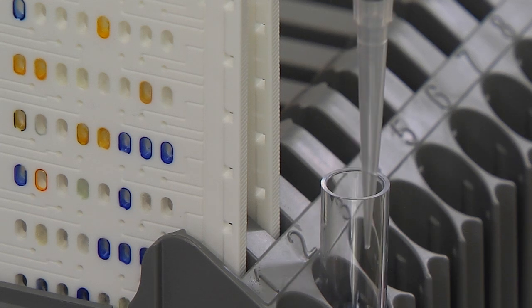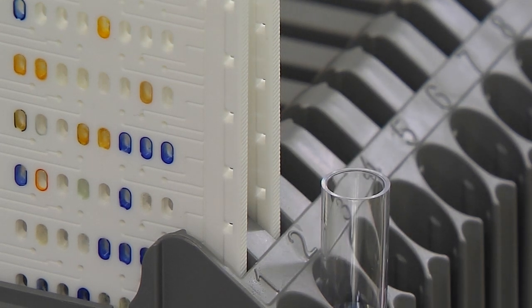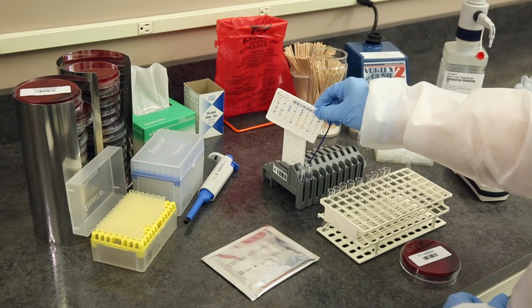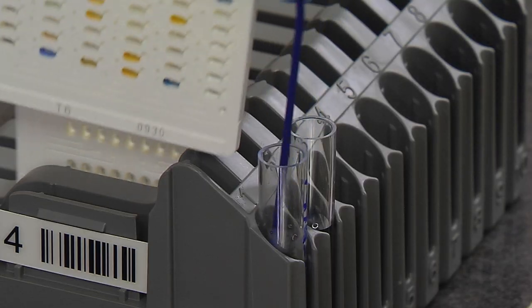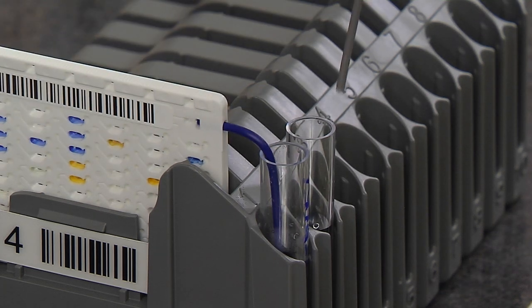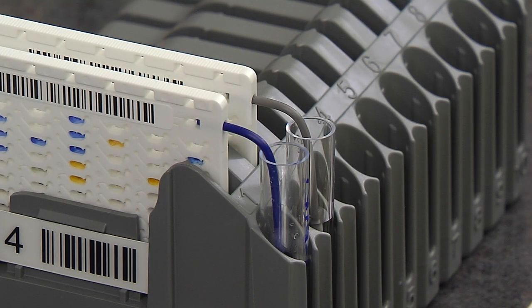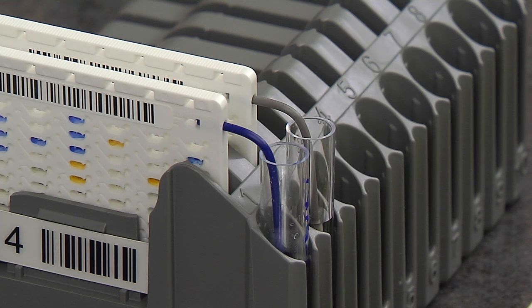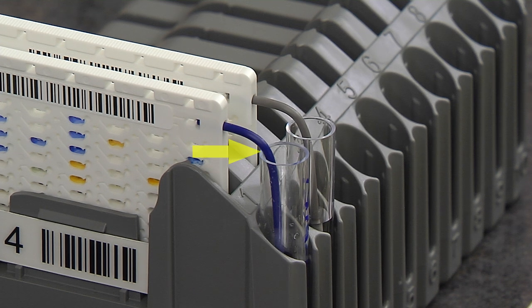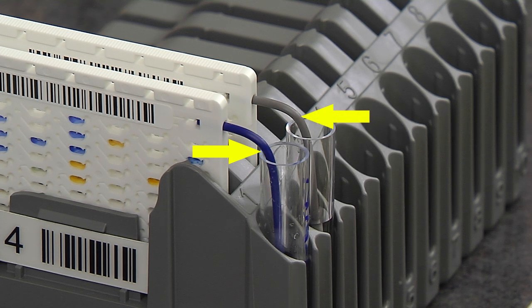It is not necessary to mix this AST suspension, as mixing will be performed by the instrument. Turn the ID card and place the transfer tube into the ID suspension. Do the same for the AST card using the AST suspension. Notice that the transfer tubes attached to the test cards are color-coded: ID cards have blue transfer tubes, while AST cards have gray.